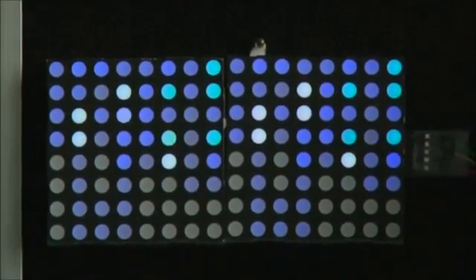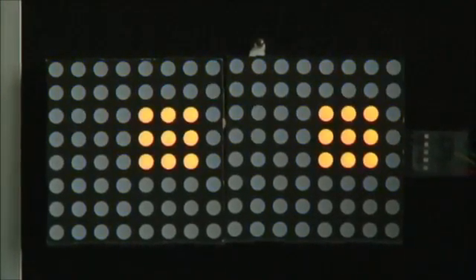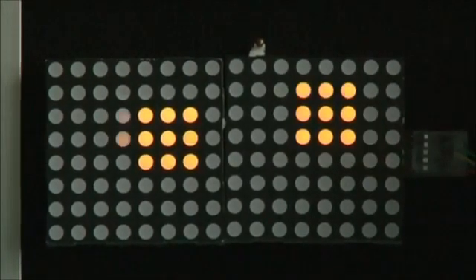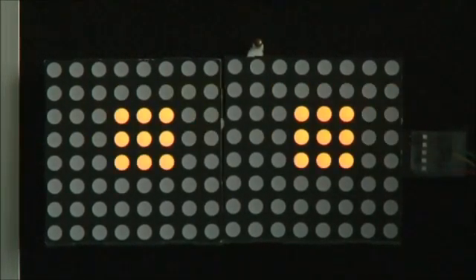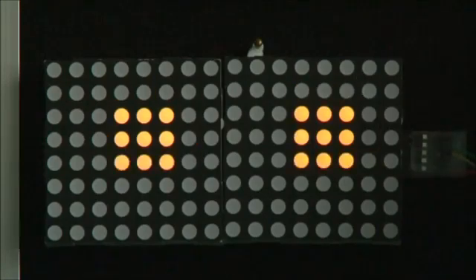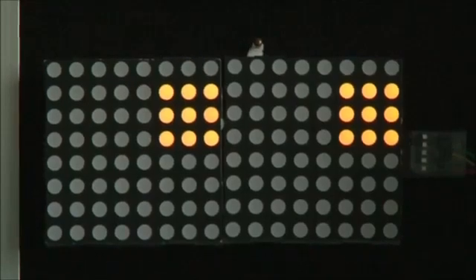But if we start doing a little bit of motion detection, and the simplest type is simply just a bright square on anything that moves, it will pick up objects that are moving in the area nearby. This is bright enough to be seen by someone with blurred or low vision.